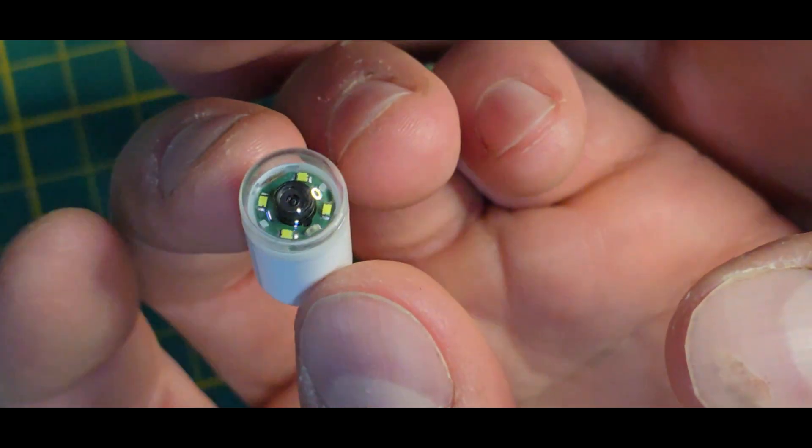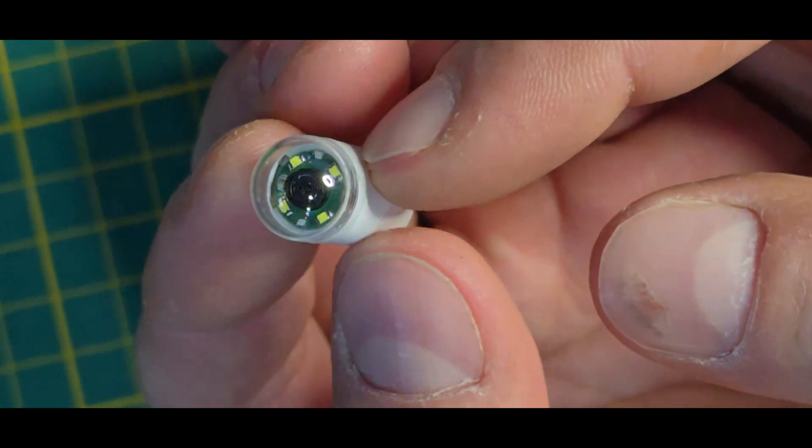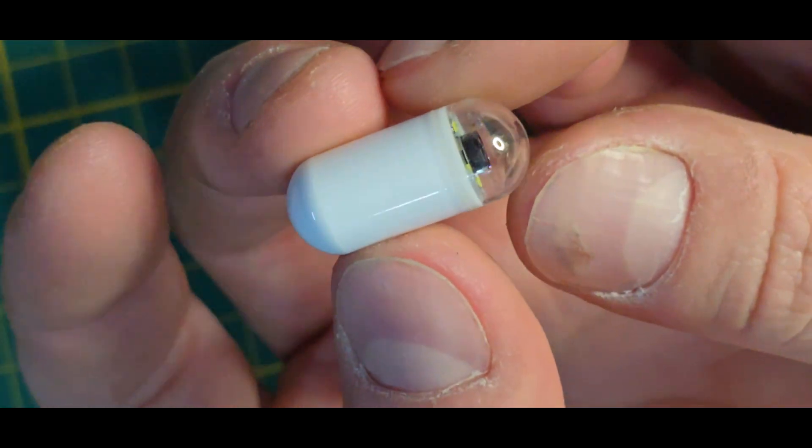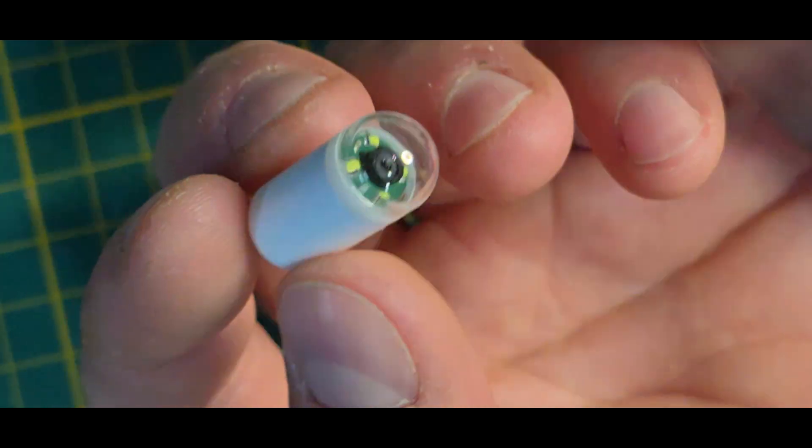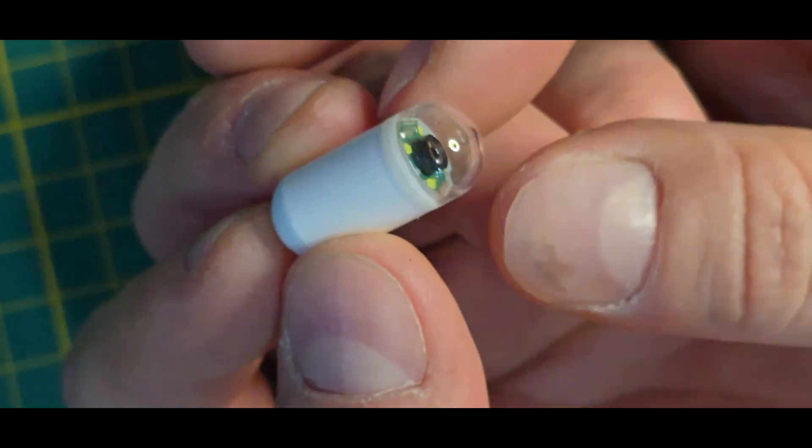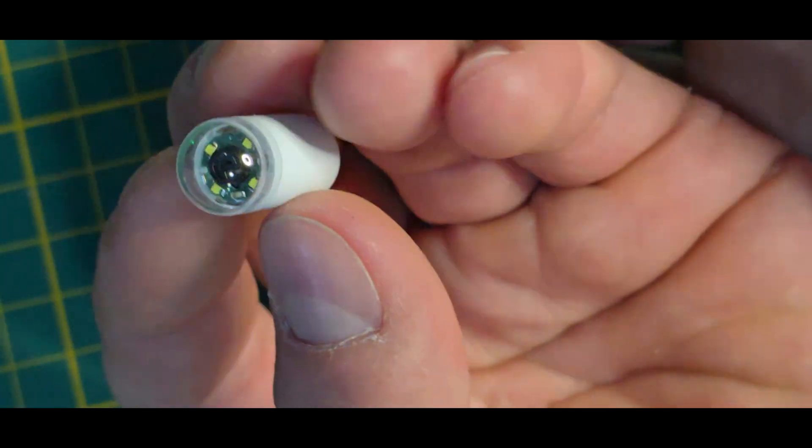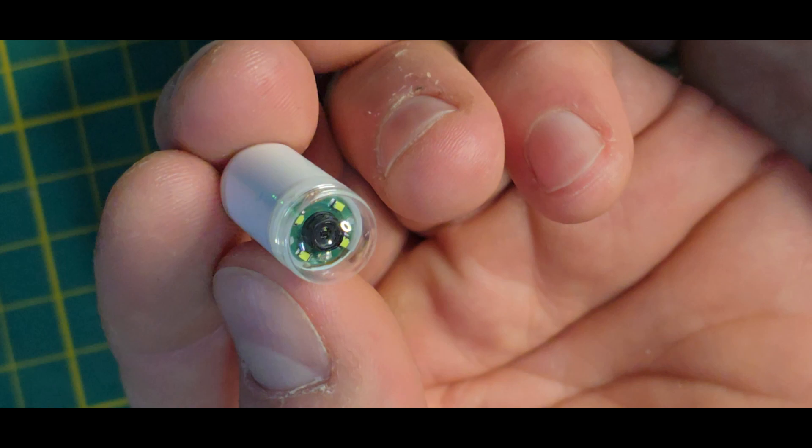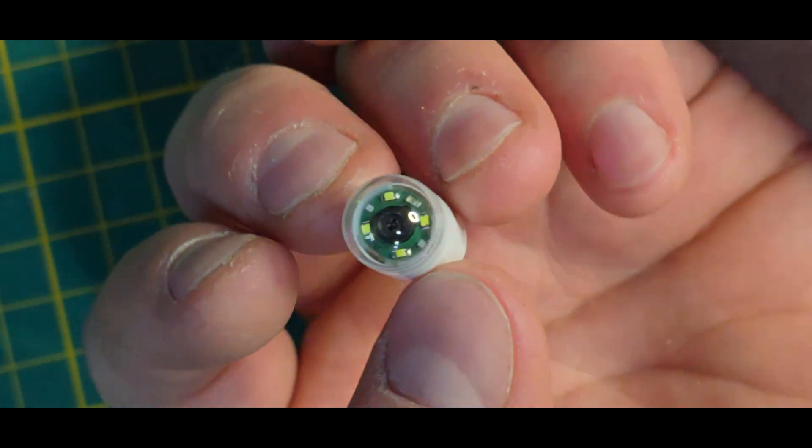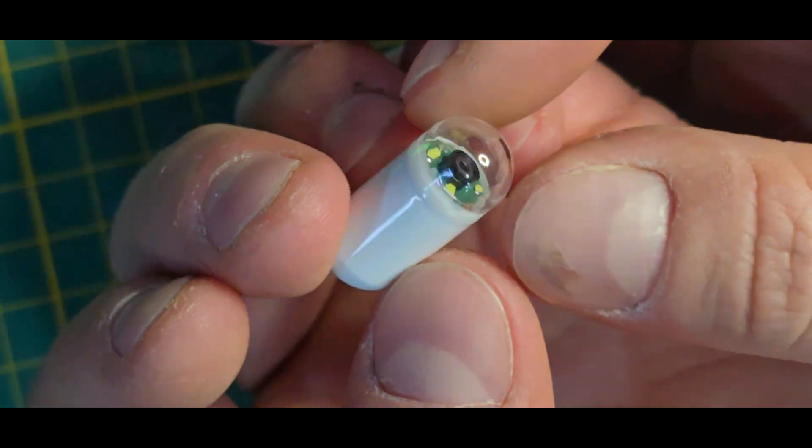It's basically a small camera with a battery inside and an RF transmitter of some kind. If you want to know what's going on inside of you, you will put this down your throat and get it out of the back side a few hours later, and while inside of you it will record or transmit the images.